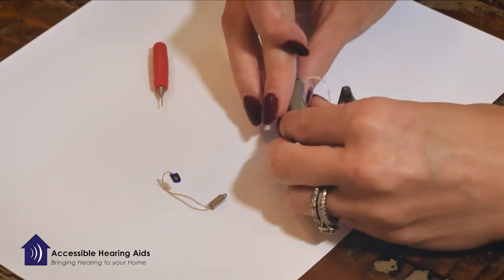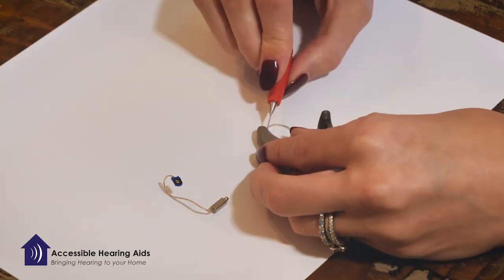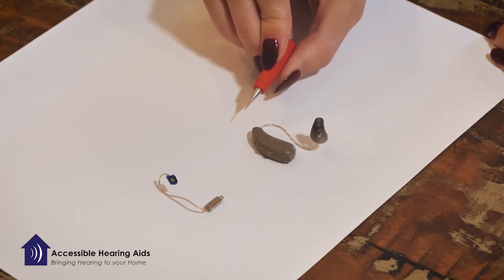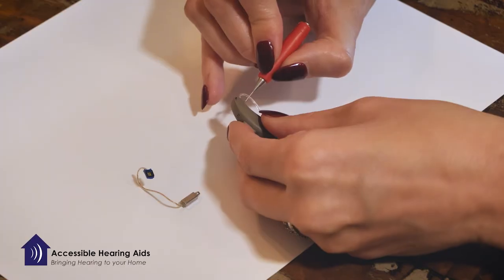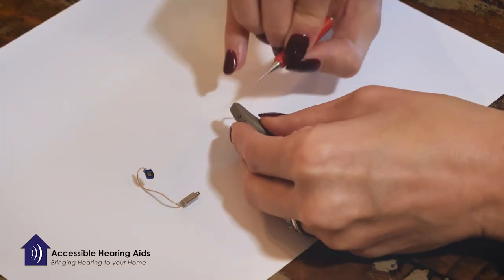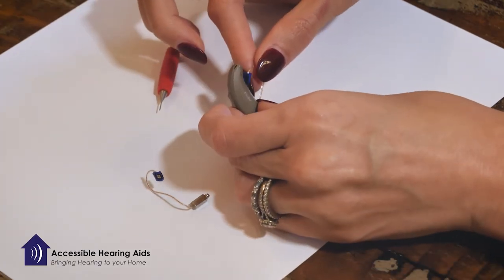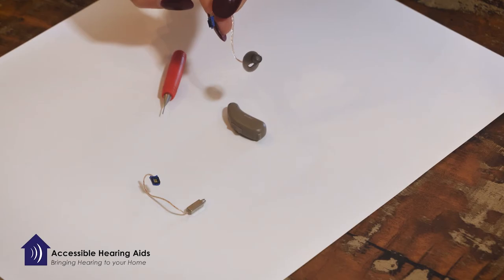You will take that sharp piece — which can be, as I said, a safety pin or a nail if you do not have a removal tool — and you are going to poke open that hole, and the wire will come right out.